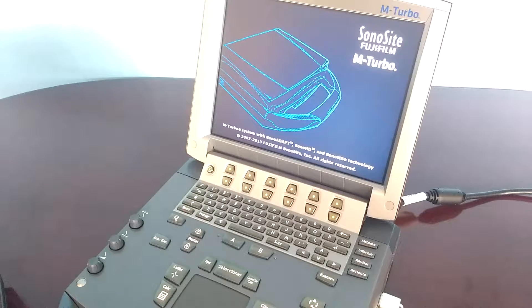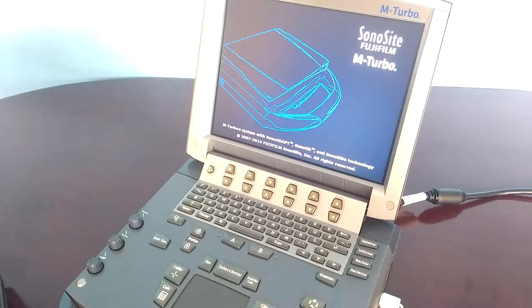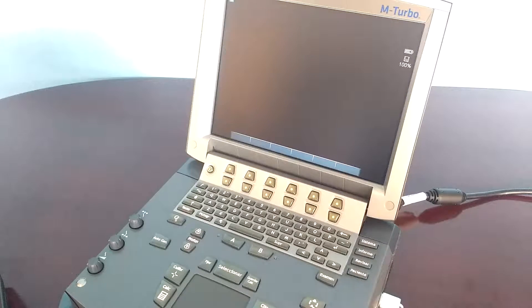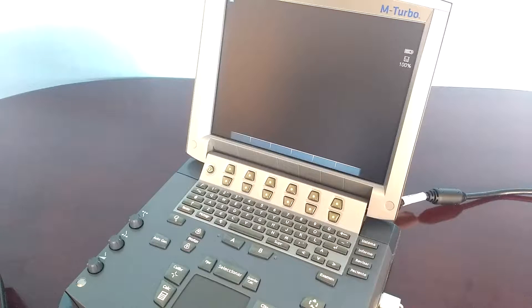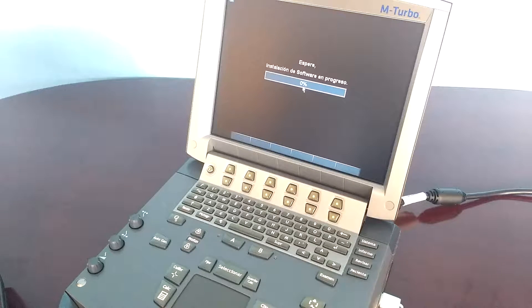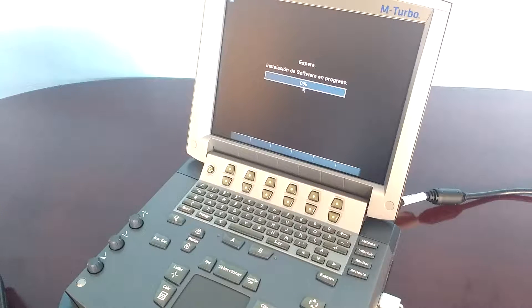A new loading bar will be shown. Please wait until it finishes.